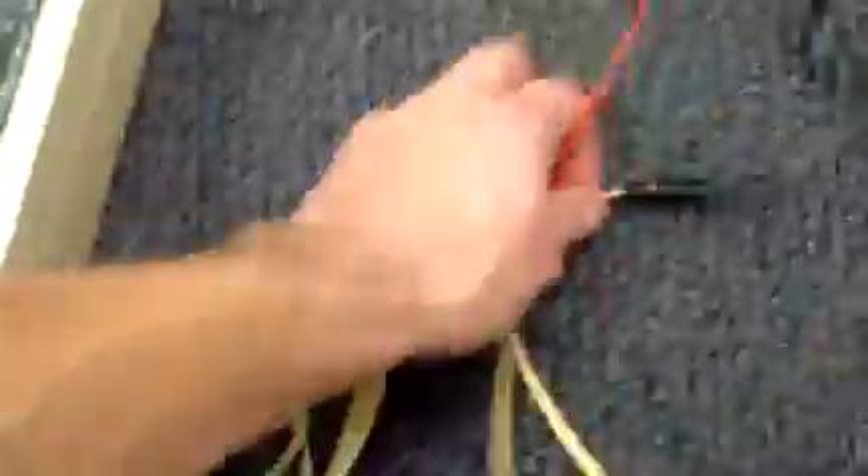Comes with the lead cable and two clips — just need the electrodes. One thing to note: one cable is kind of cut, but it's just the plastic protective part. I don't see any exposed wires.